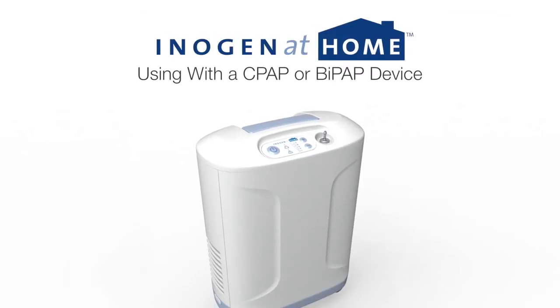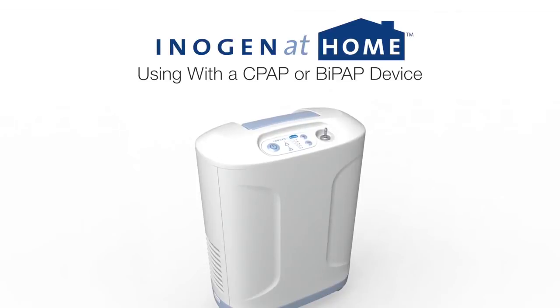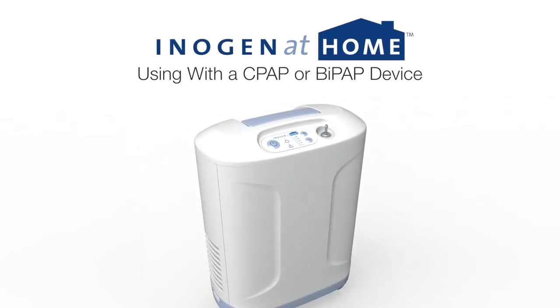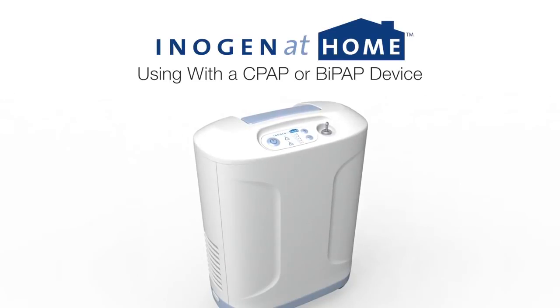The Inogen at-home concentrator is designed to be used with a CPAP or BiPAP device if medically required. The following uses a CPAP device to illustrate how easy it is to connect with one of these devices.